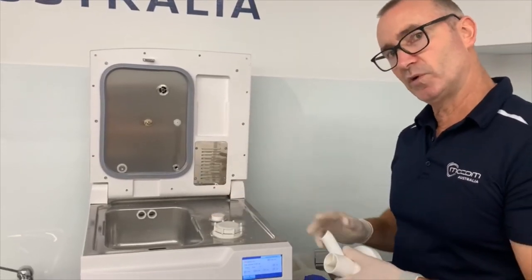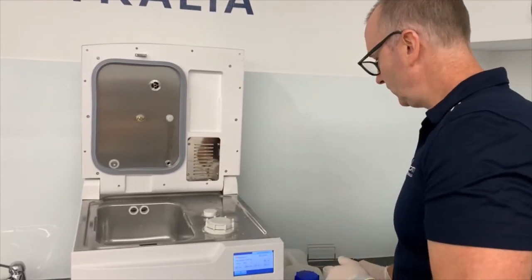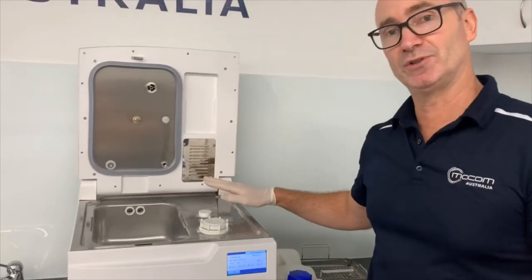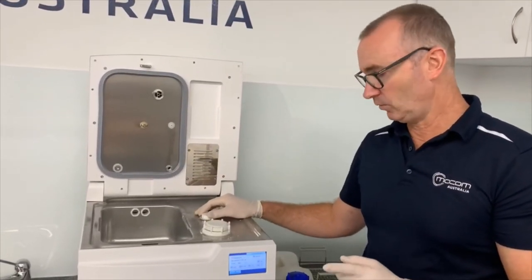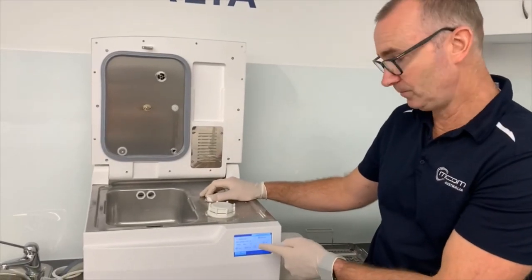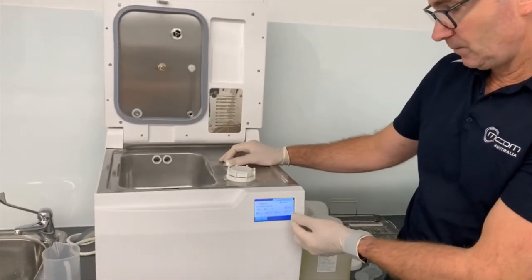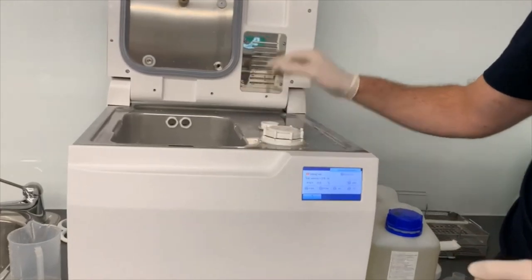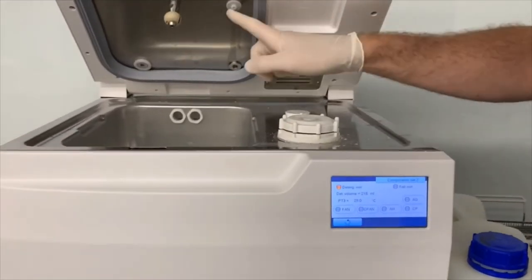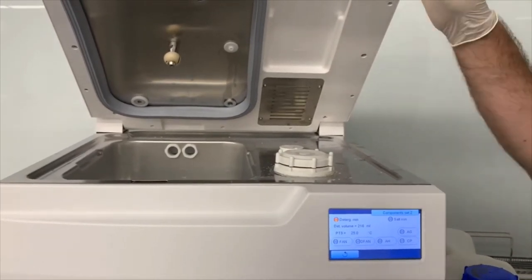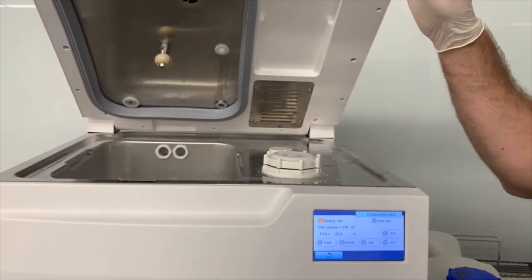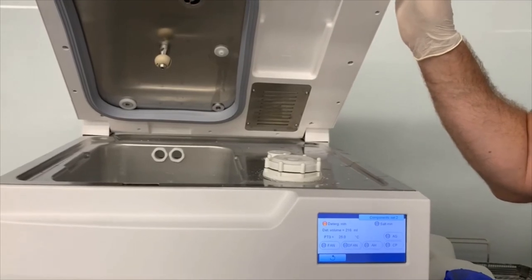The next step, of course, when you do come back, is to fill up your detergent reservoir with detergent. And wander back into this same menu and press on chemical pump, just so that you see some chemical coming out of here and then stop. Just so that you're purging the air from the line. And you've got chemical there for the very first cycle when you're back.